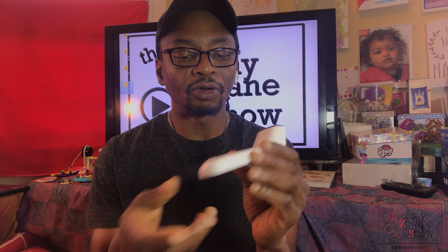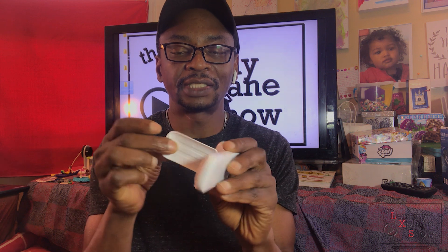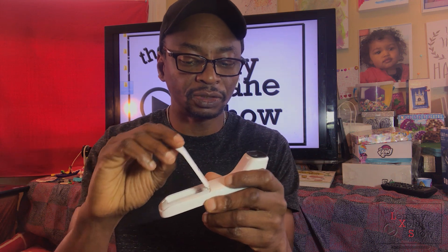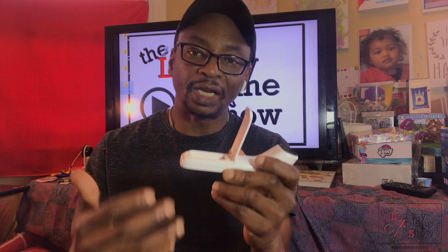It's got no batteries in it yet. One thing I really like is that the lid stays on — it's got hinges, so it doesn't actually come off. That's a nice touch, because these things do get lost. That was a nice design feature.